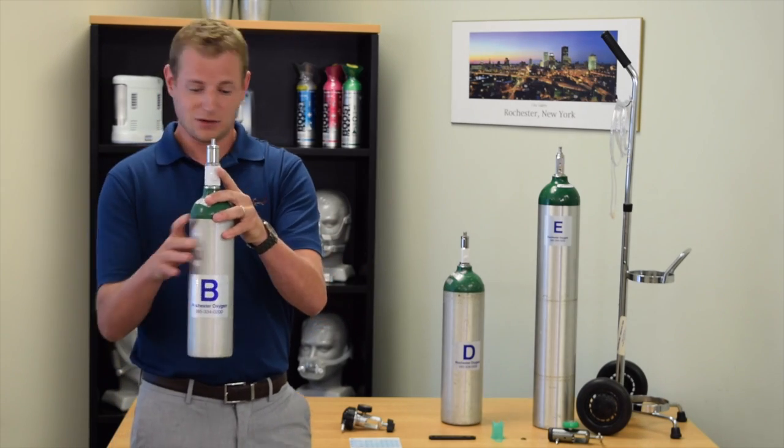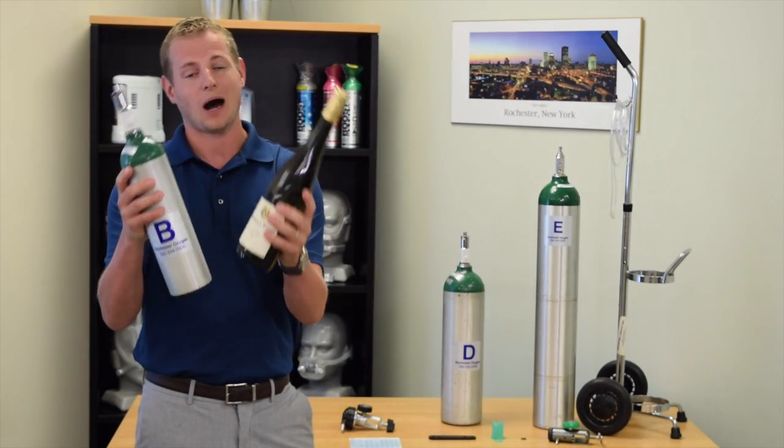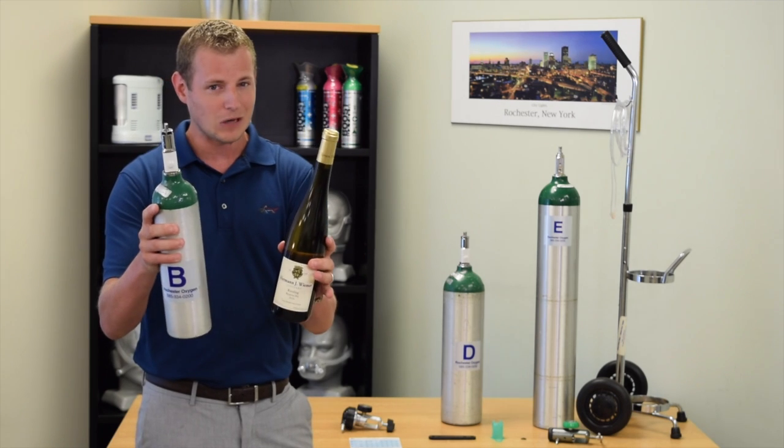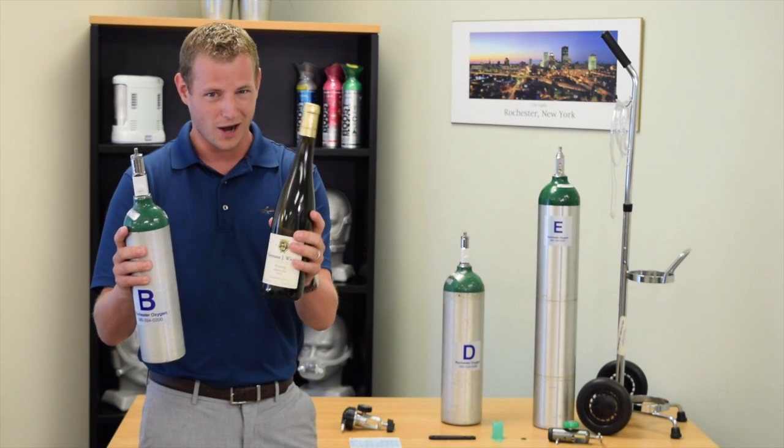Just for reference, this tank here is about the same weight and size as a bottle of wine. But please note, make sure you open your oxygen tank before you open your wine bottle.